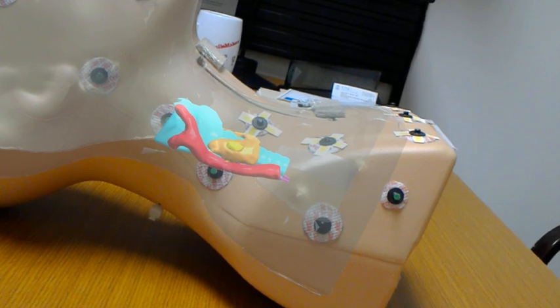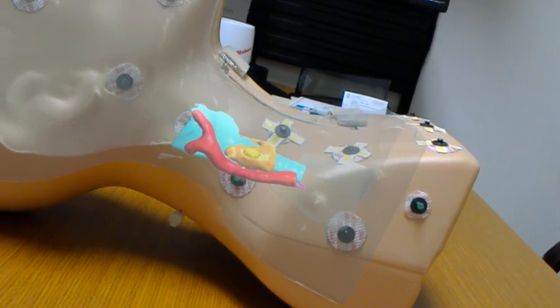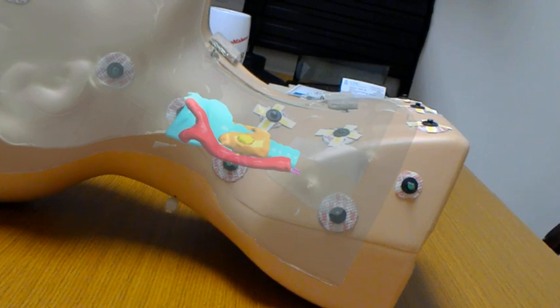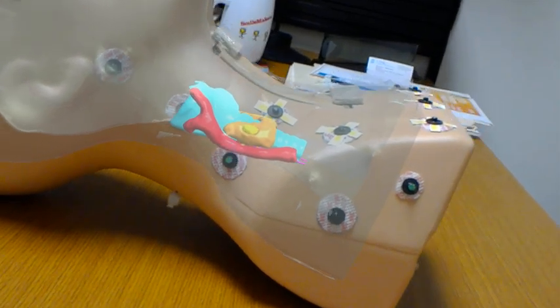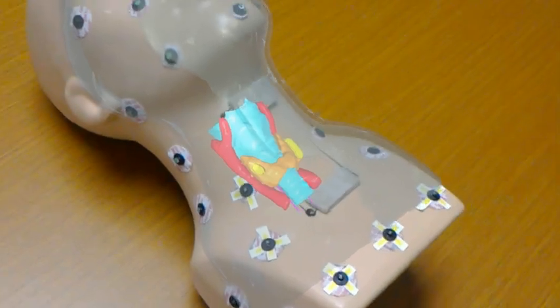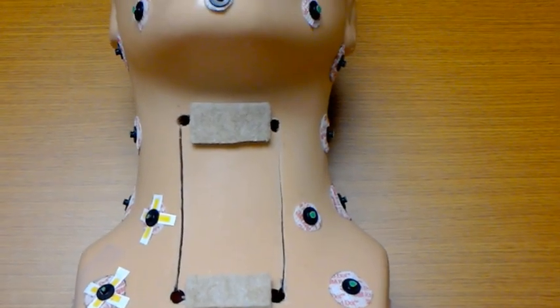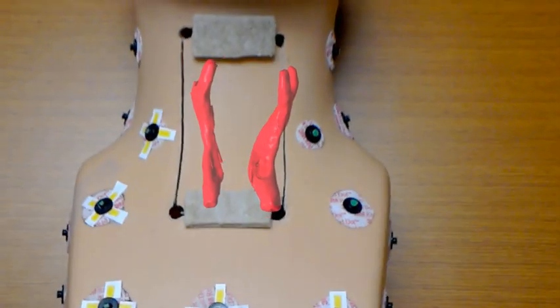We can play with the brightness of that, which can come in handy during surgery, but I'll turn it up there for a sec. One of the things HoloLens lets us do is turn these structures on and off, sort of toggle them as individual components, which is handy as well. All off. Artery on. Nerve on.